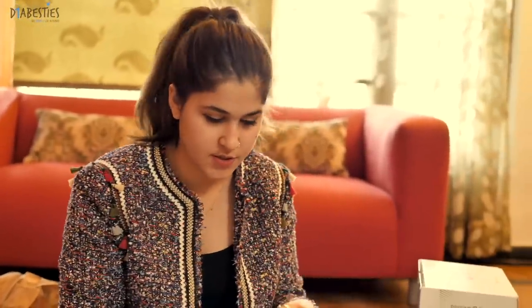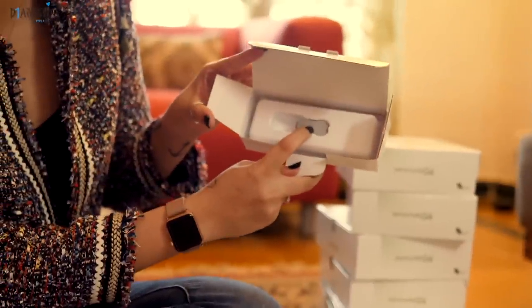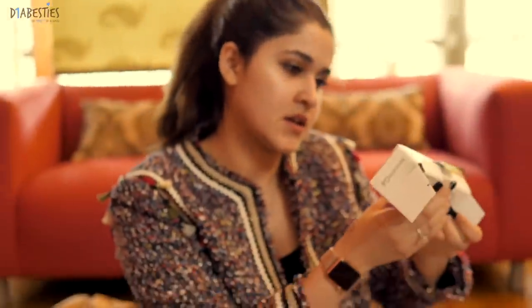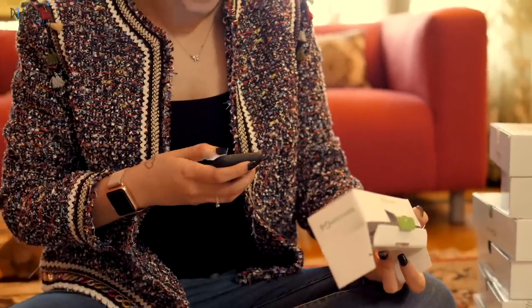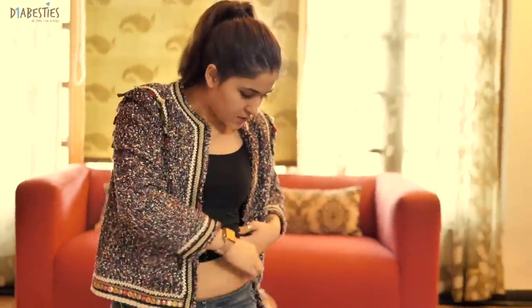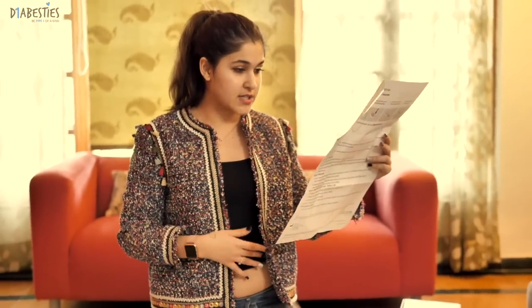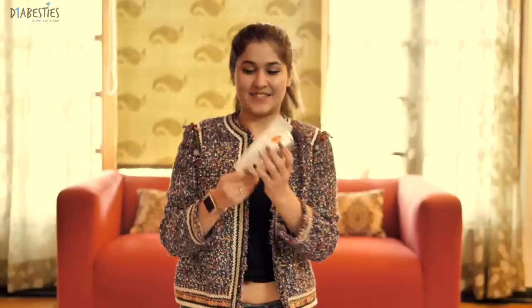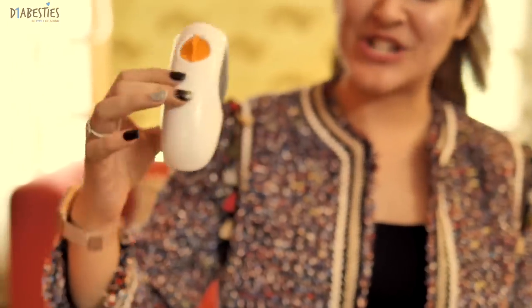Transmitter serial number — where is my transmitter? Okay, so this is the transmitter. It says: open the applicator pack, remove both labels, do not touch the adhesive. This is exciting! So I'm opening it up — that's what it looks like. It looks like a machine — actually it looks like a taser!